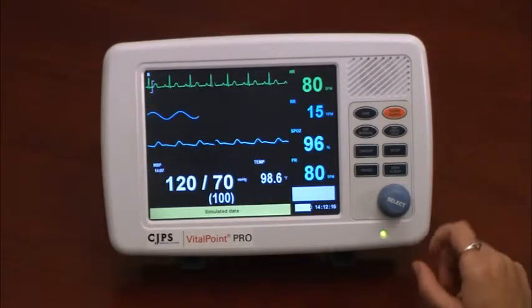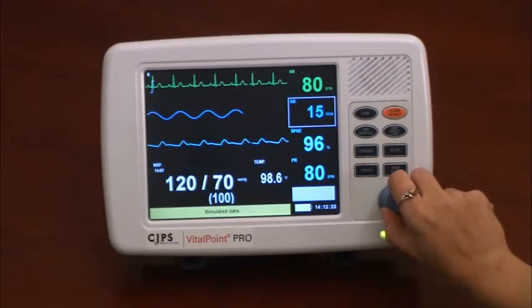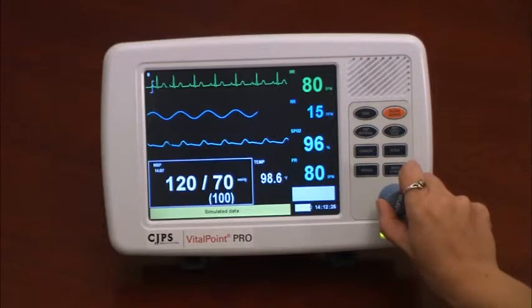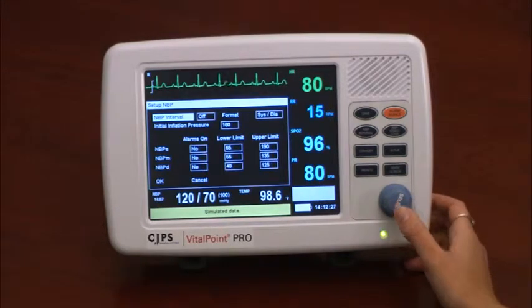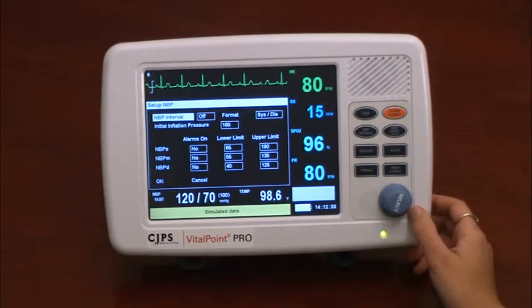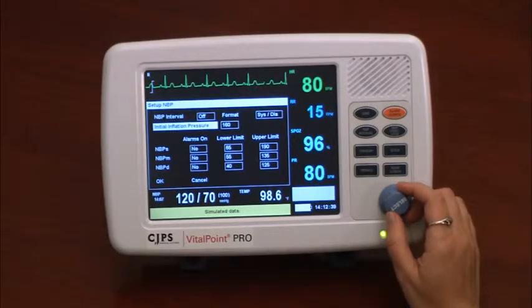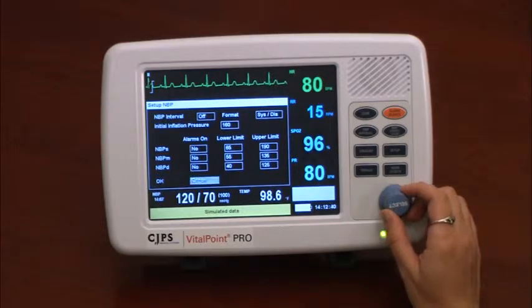Using the selection knob, the user can navigate around the monitor screen. The selection is shown with a white box around each option on the screen. Selecting one of the various vital sign measures will provide the user with a snapshot of information related to the given measurement. Taking the blood pressure as an example, one can view the parameter limits, alarm, and other settings by pressing down on the knob.